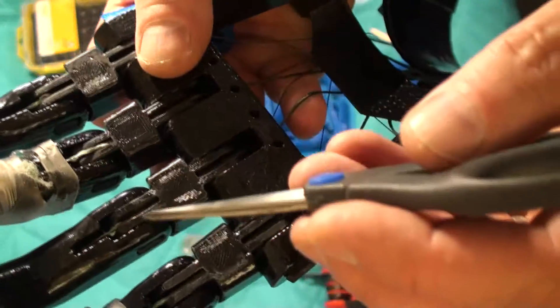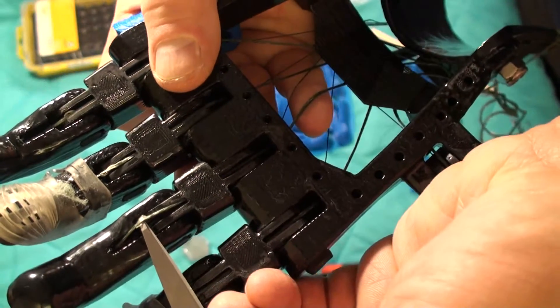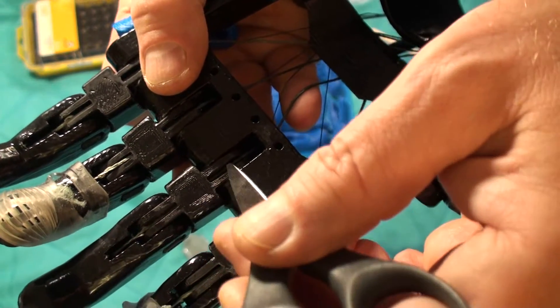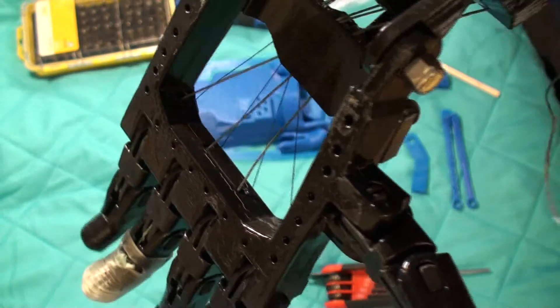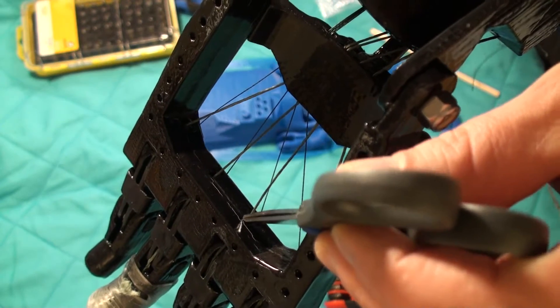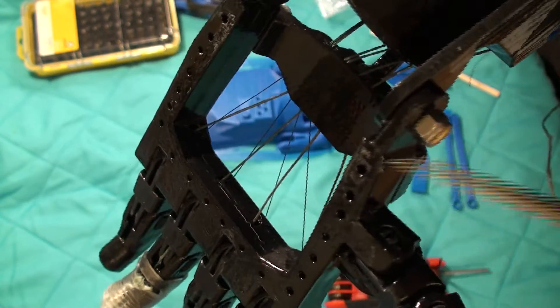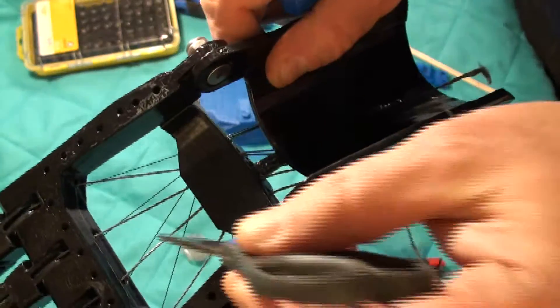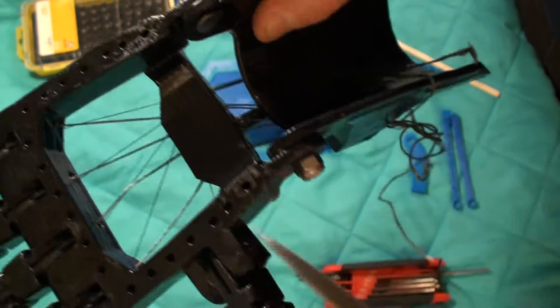So again we're looking at the middle finger here. This is the same cable — it's tied in a knot and it runs down the underside here. Then you can see that it goes into this hole here, which is around the middle of the inside of this bracket. We're following the flexors, and this is a heavy gauge — a 250 pound braided line.